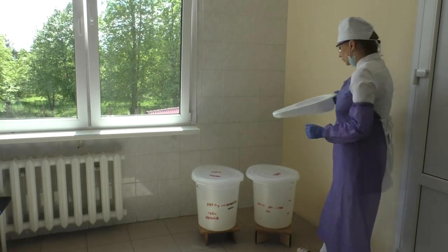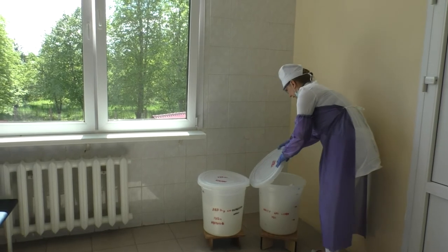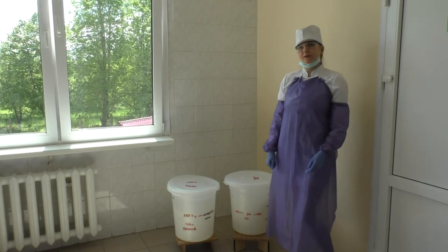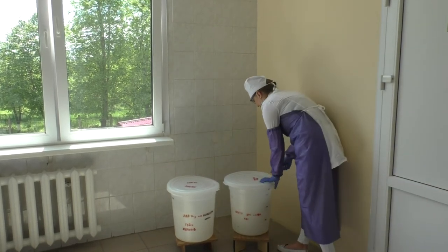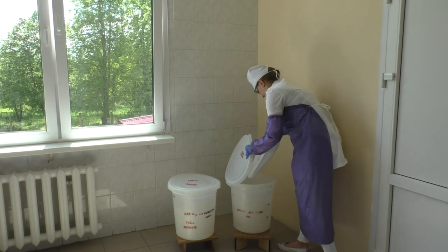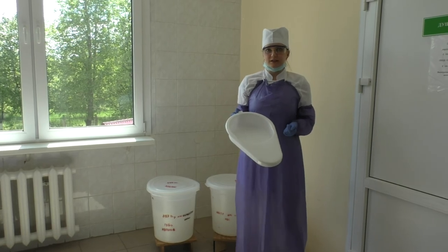Use the proper time of exposition and close it. After this time of exposition, you should rinse the bedpan and store it in the proper area. Dispose of all personal protective equipment safely.